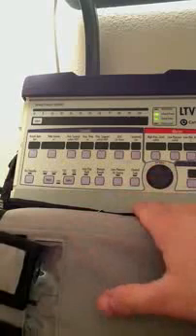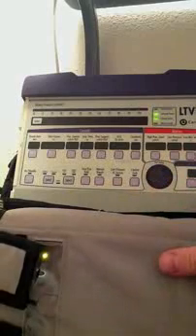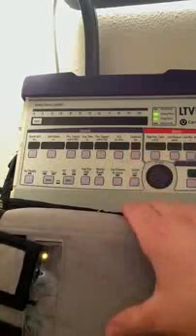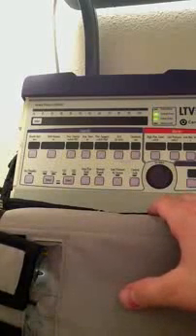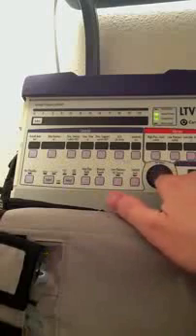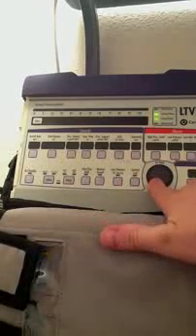This ventilator has its own compressor. It doesn't necessarily need a compressed oxygen gas source to run, and in fact all of the stuff that I'll be doing on this ventilator today will be done on room air. It has a very effective compressor. I believe it can deliver up to something like 120 liters per minute of flow on its own. This over here is the PEEP, and this is a little selector dial. This is what we use to go up and down on our setting, just like this, and there's a little indent where you can put your thumb in.